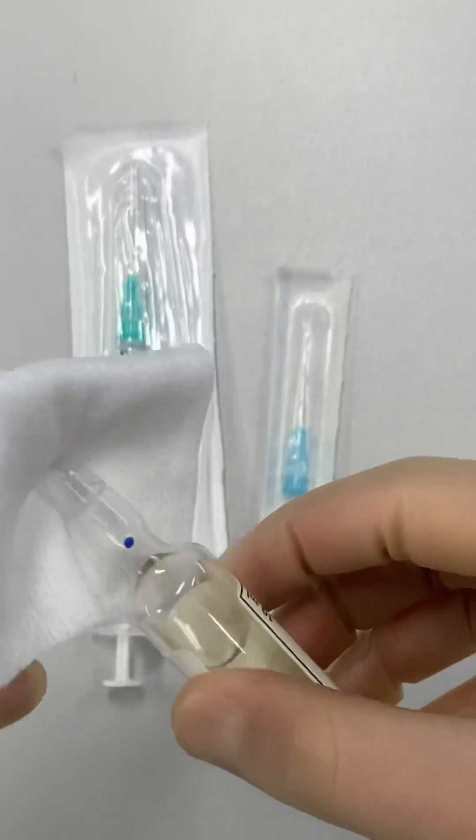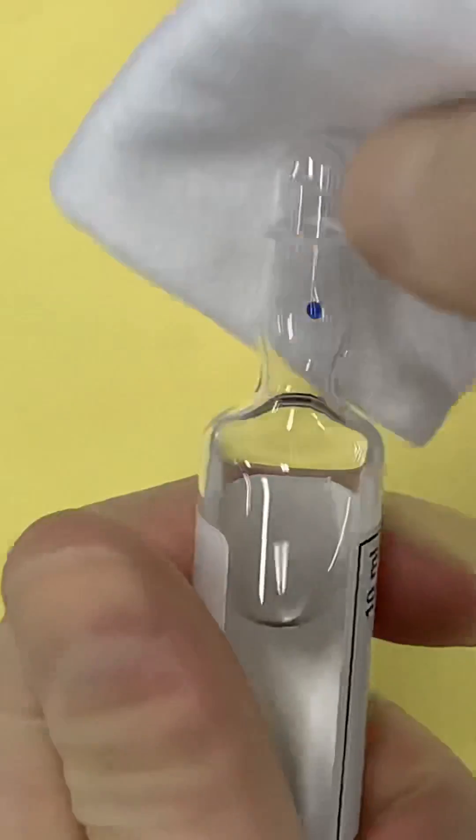Now here's a demonstration of how not to break a glass ampoule. To do it properly, first flick the tip to get all the medication down.